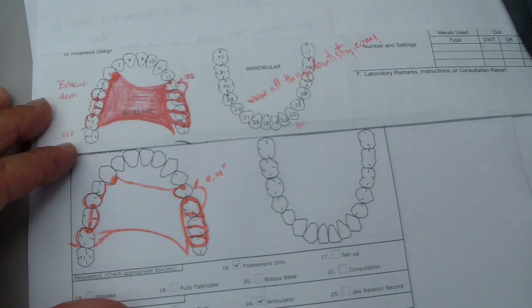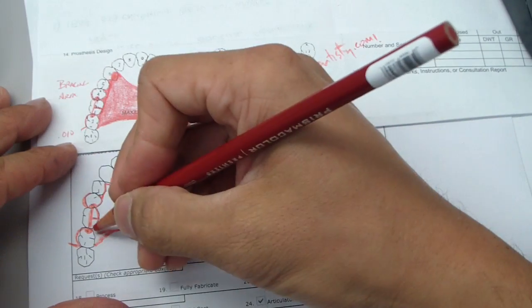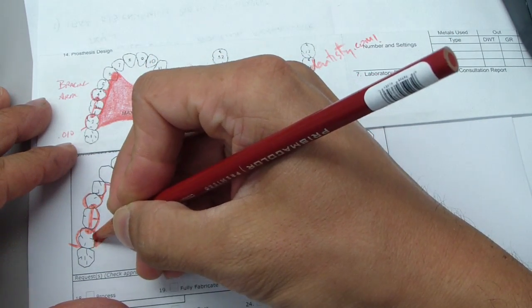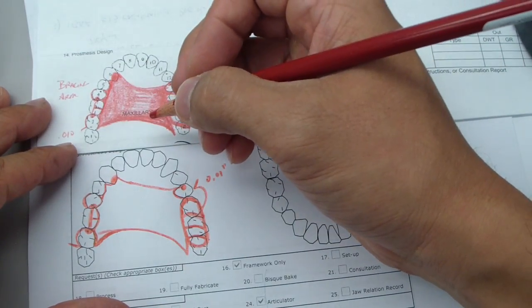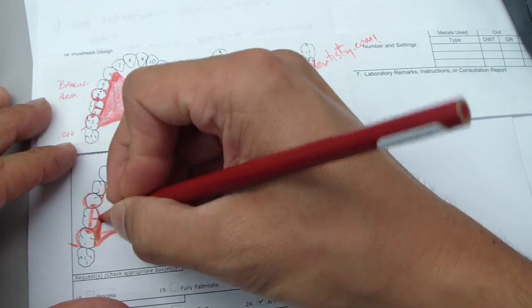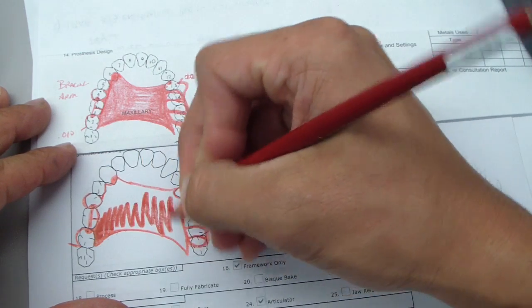Oh, of course. And we're going to plate the side of this. There we go. And it looks all right. We're just going to color it all in.